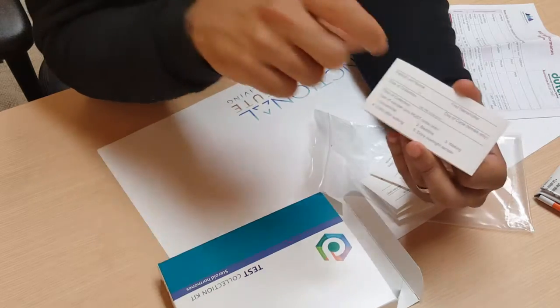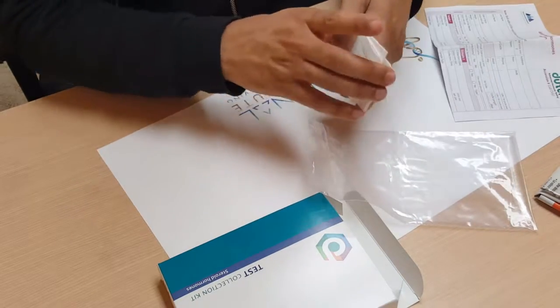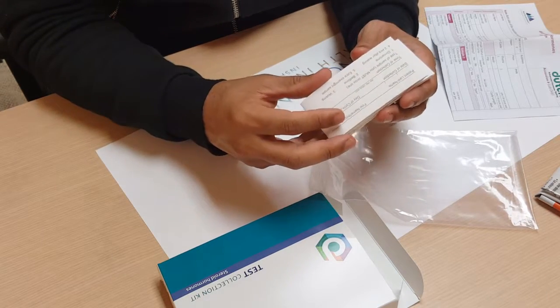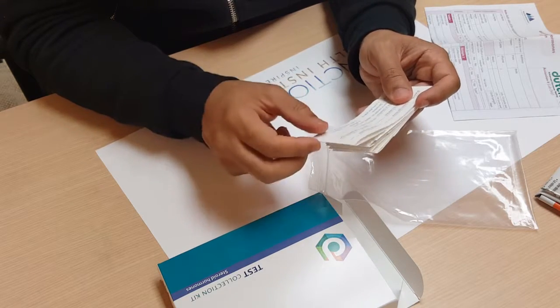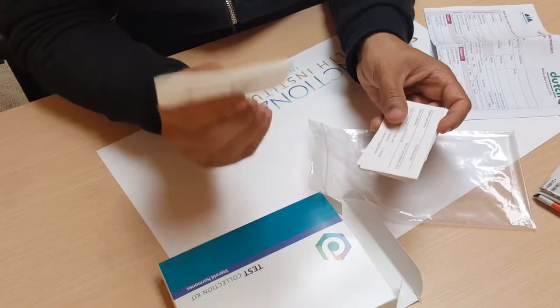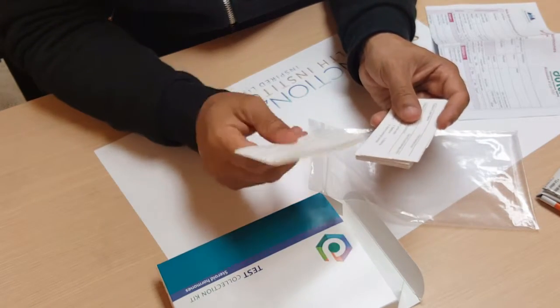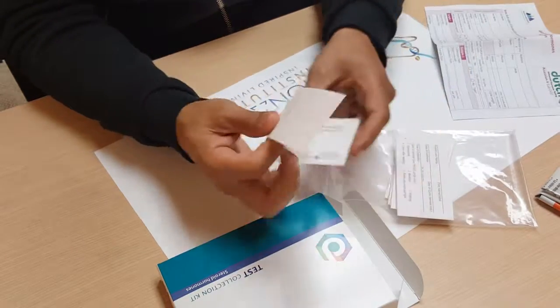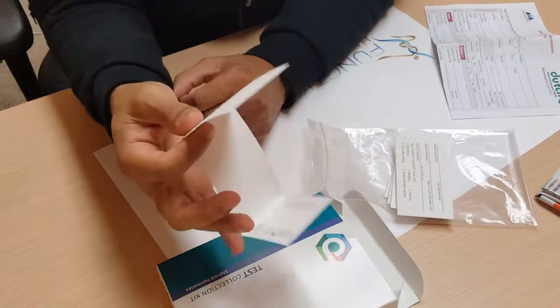The first sample is at dinner time. Make sure you do not consume any coffee or large fluid intakes after lunch, and no fluid intake two hours prior to when you do this sample. So if you do this at 6 o'clock, no fluid intake after 4 p.m. and no coffee since lunch. Then collect the sample — you can urinate directly onto the filter paper or dip it into a container with your urine, not into the toilet.